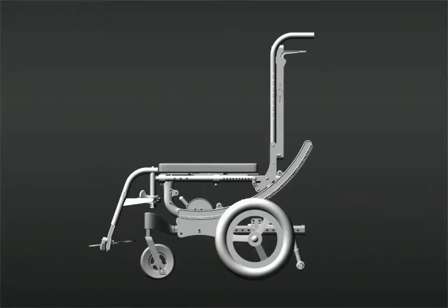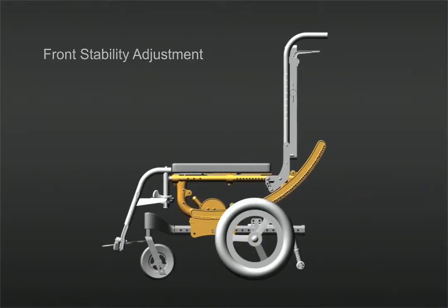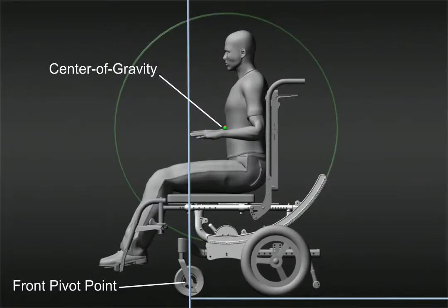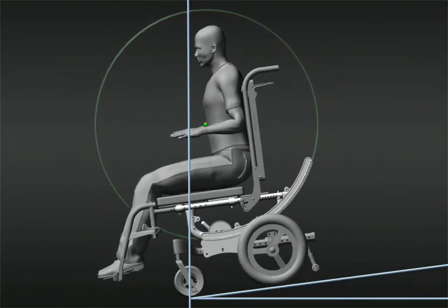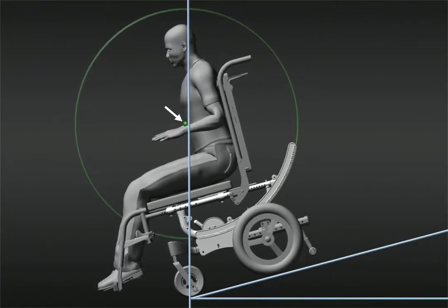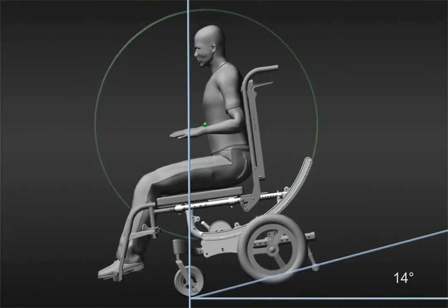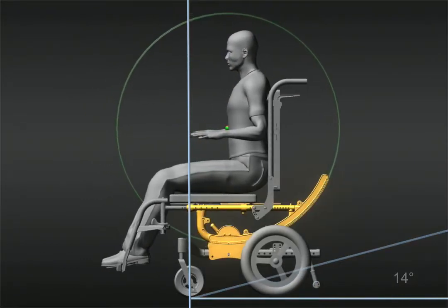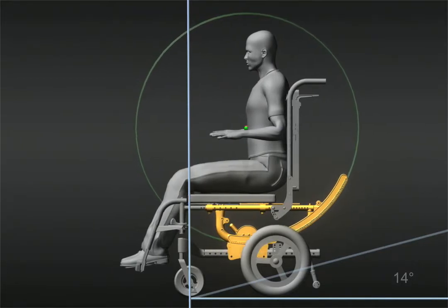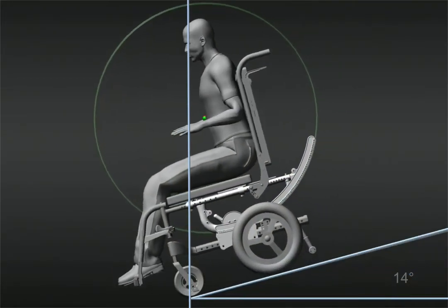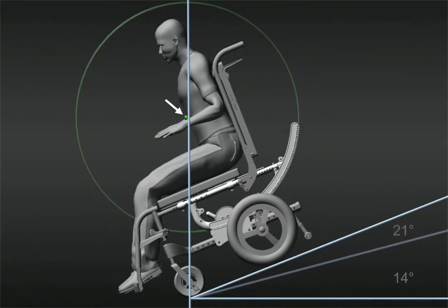Now let's look at front stability. The front stability adjustment allows you to reposition the carriage over the base frame. In the previous example, you'll remember that we moved the person's center of gravity forward to match the CR. This also moved it forward relative to the caster wheels. As the system is put into a slope, you'll notice a point where the CG goes forward of the position of the front caster wheel — this is the point of instability. We can make a simple adjustment by moving the carriage rearward and realigning the hanger and the front caster, which will improve the front stability significantly by changing the slope.